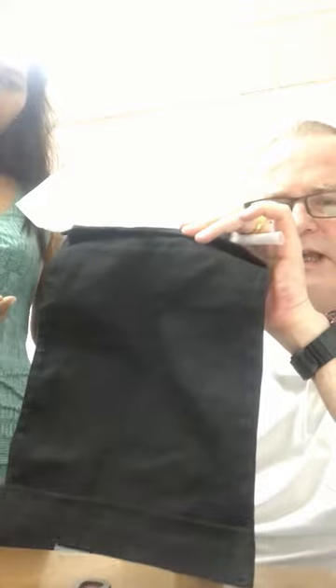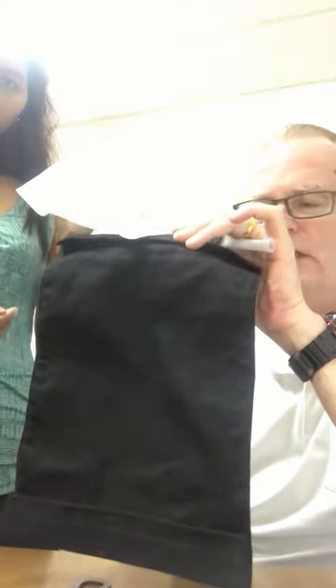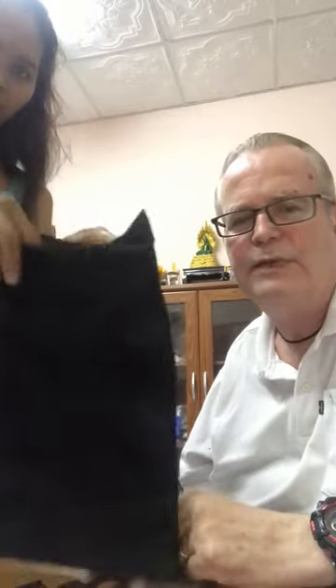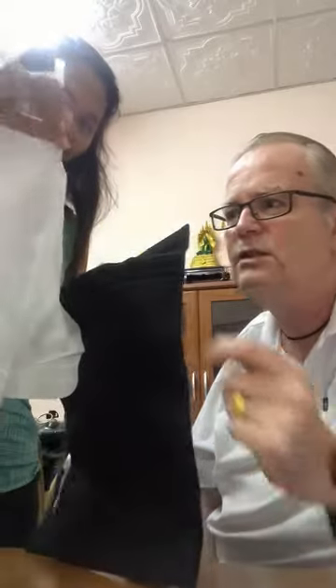It's a good size so it doesn't actually look out of place. You can buy bigger bags if you wish, but May's now going to put this particular 2,000 milliliter bag into the TP bag. Please do watch while she's doing this — this is a 2,000 milliliter bag and it fits in nice and snugly.